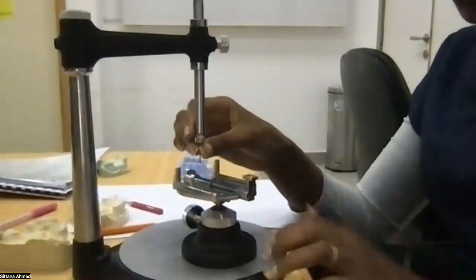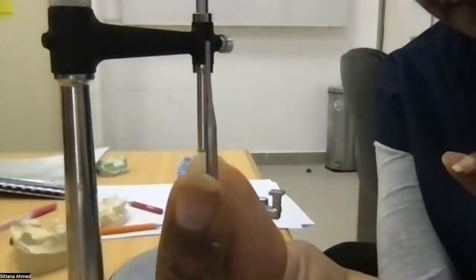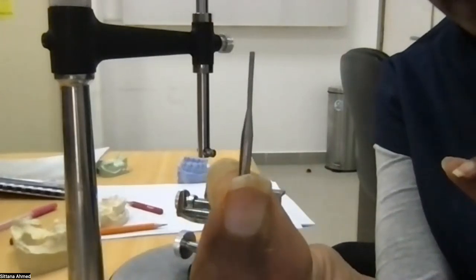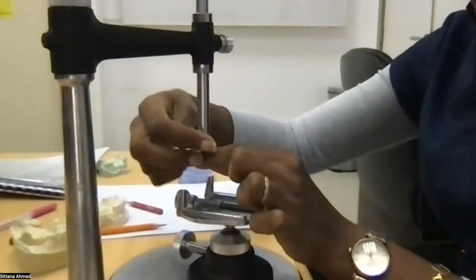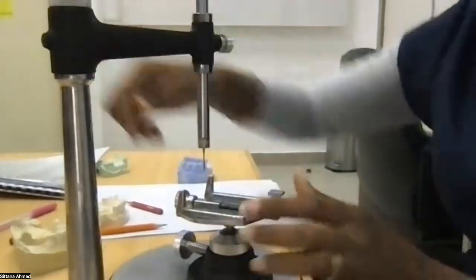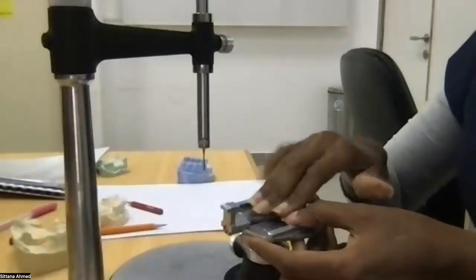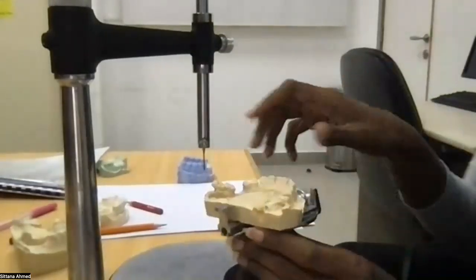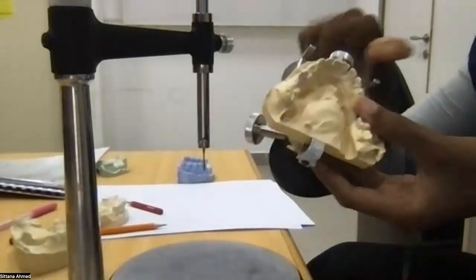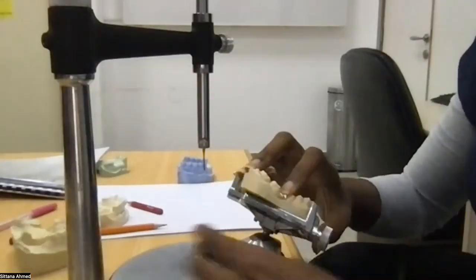so I will attach this component, which looks like this. It's only a piece of metal which is straight. I will attach it, it's called the analysis rod, and I will attach it to the surveyor and I will lock it to it. This is an adjustable table. You open it from this side, so it moves in any direction. And then you need to attach to it from the top here, the cast. So you open it to put the cast, which is this cast, for example, you put it in and you lock it. Tamam? Then it's wobbly because I did not lock this.